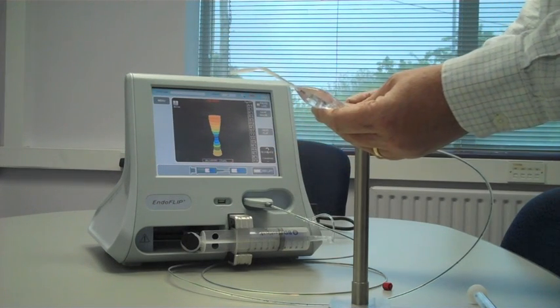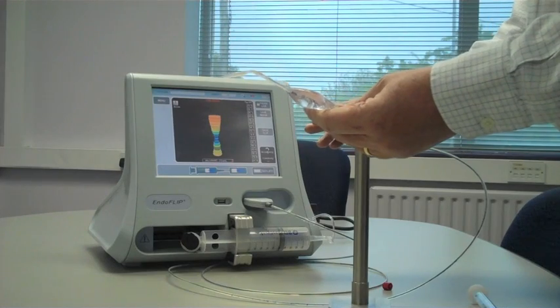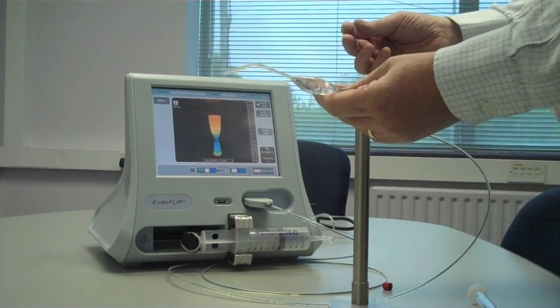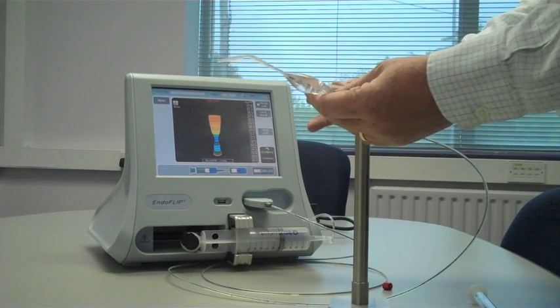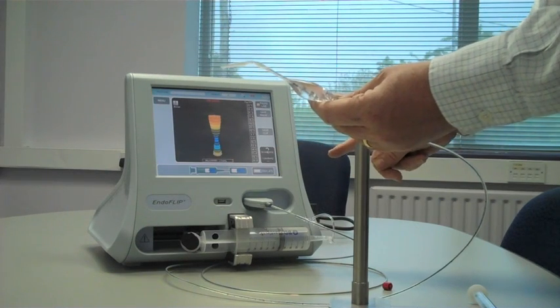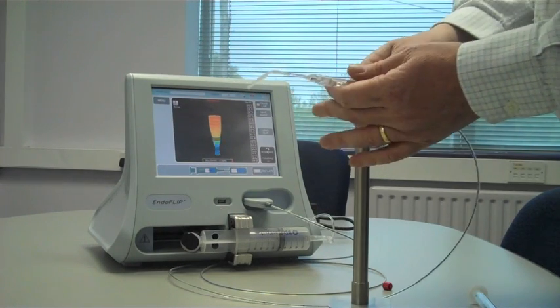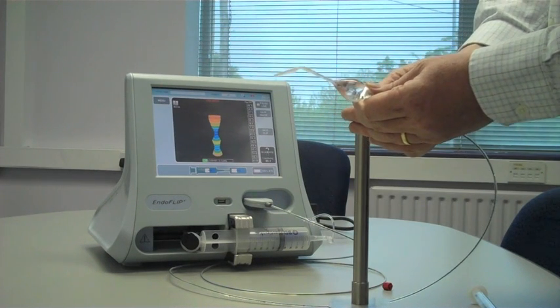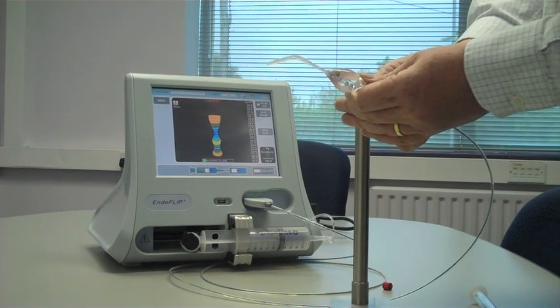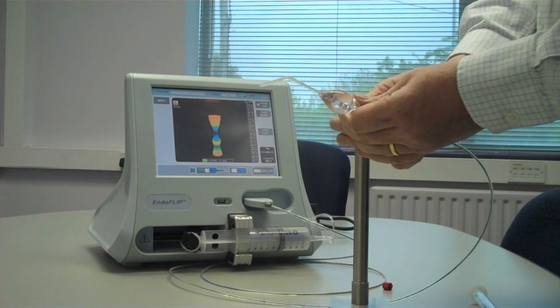This compliance is essentially the volume 1cm above and 1cm below the minimum diameter in the catheter, so it's a pseudo-compliance which could be used to assess, for instance, the compliance of the GEJ. You'll notice at the moment there is no figure here, and the reason for that is that we require at least 10mm of mercury distending pressure before we can be comfortable that we're getting a good distensibility figure. The distensibility figure is essentially calculated as the minimum cross-sectional area divided by the distending pressure within the balloon.